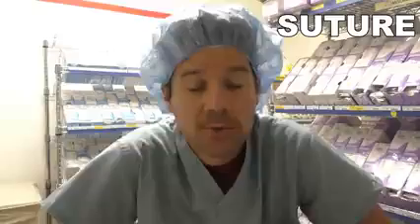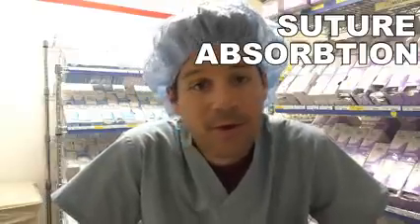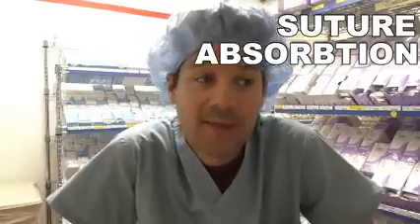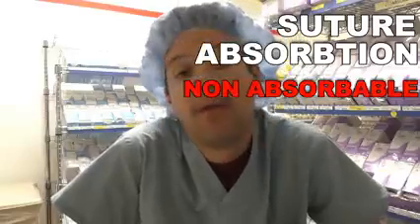Going on, let's talk about our suture. And let's talk about suture absorption. There are only two types of absorption in sutures. There's something that's non-absorbable, and there's something that's absorbable. Simple as that. It doesn't get any simpler than that. It's either absorbable or it's not. Now when it comes to the different types of suture, that's when things get a little bit more complicated.